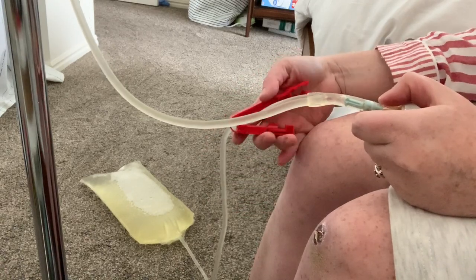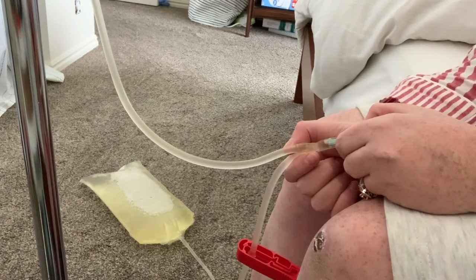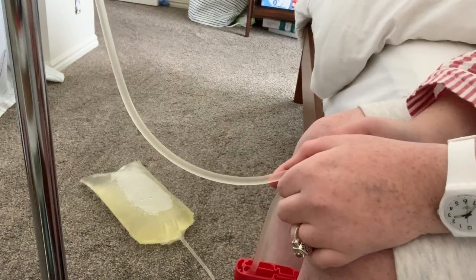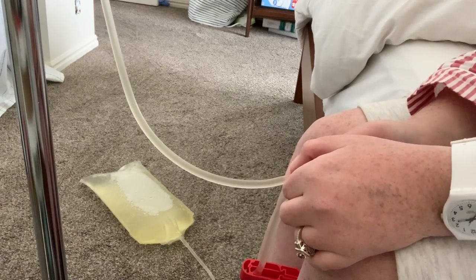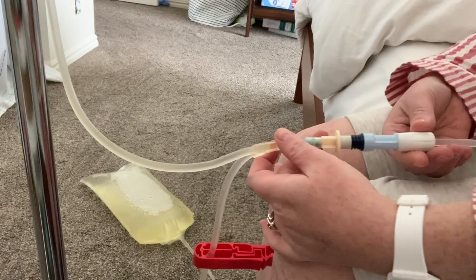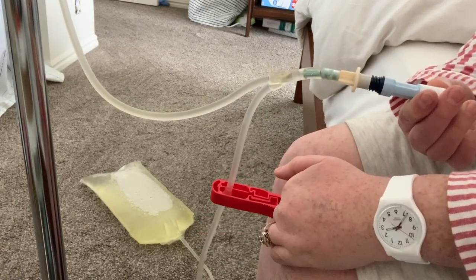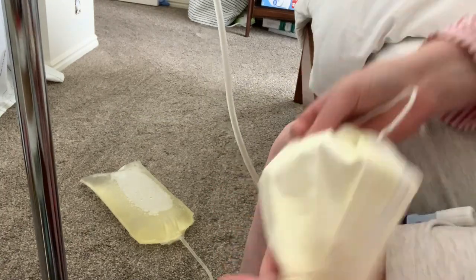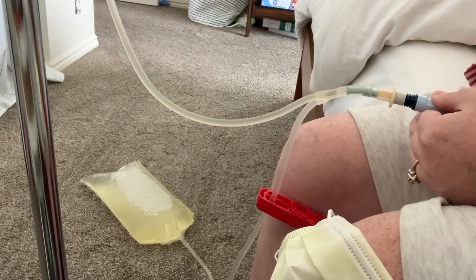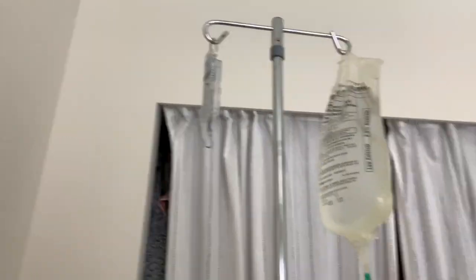And then I'm going to open the clamp on this one — this releases all the air bubbles into the waste bag. Because if any of the air bubbles go into me, I will experience extreme pain in my shoulders. I've had it happen before and it's one of the more uncomfortable experiences I've had. We always make sure to clamp that. Then I'm going to open my transfer set — now all the fluid is going into my abdomen. Okay, so all the solution is draining into me.